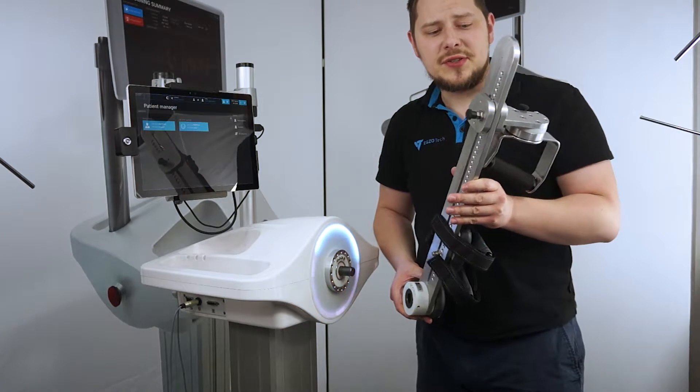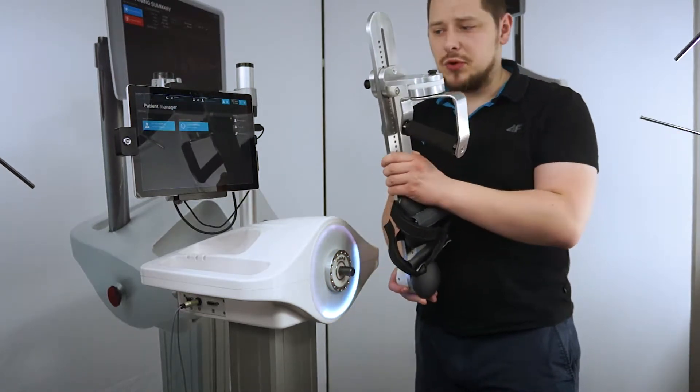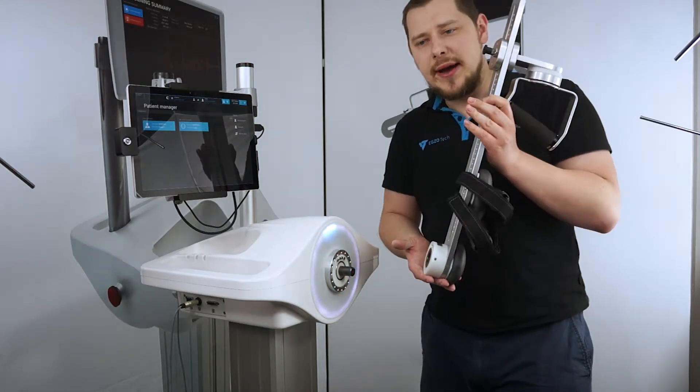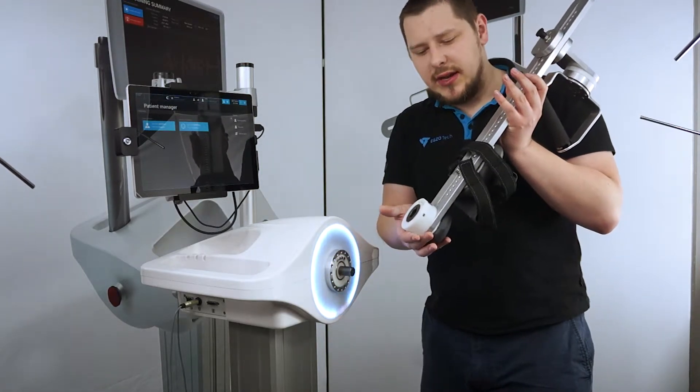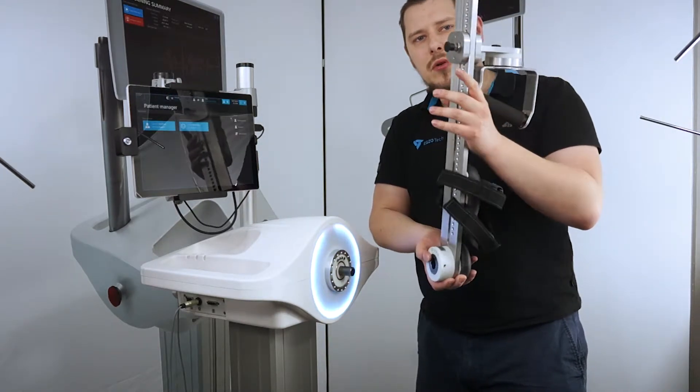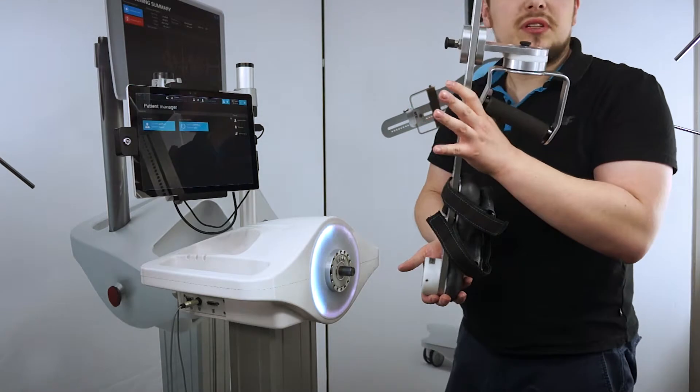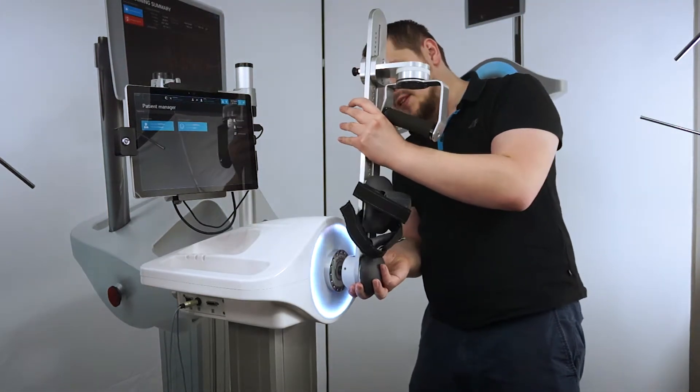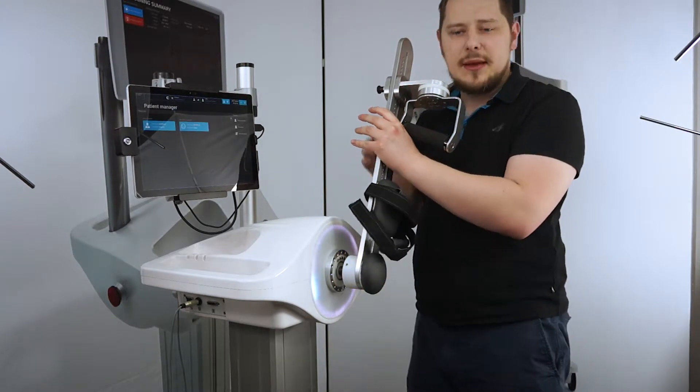It's the same with larger extensions - they just generate much more torque one way or the other. With that, I like to use two hands while putting them in: one hand near the extension connectors and one hand to stabilize the torque going one way or the other. So what we'll do is quite similar to any other extension - it's still this three-step walk-through.